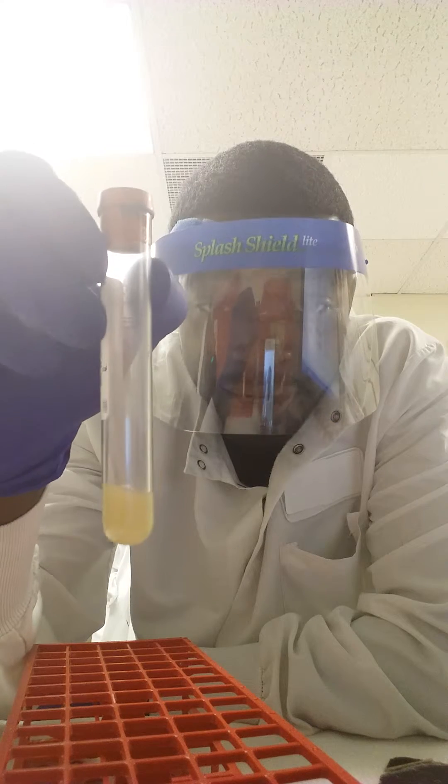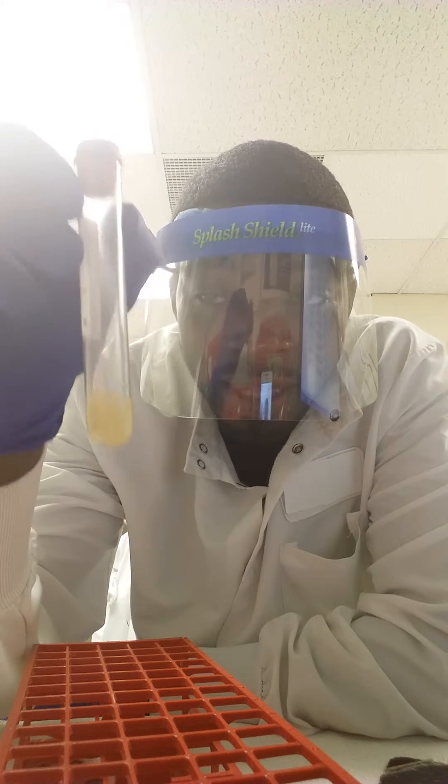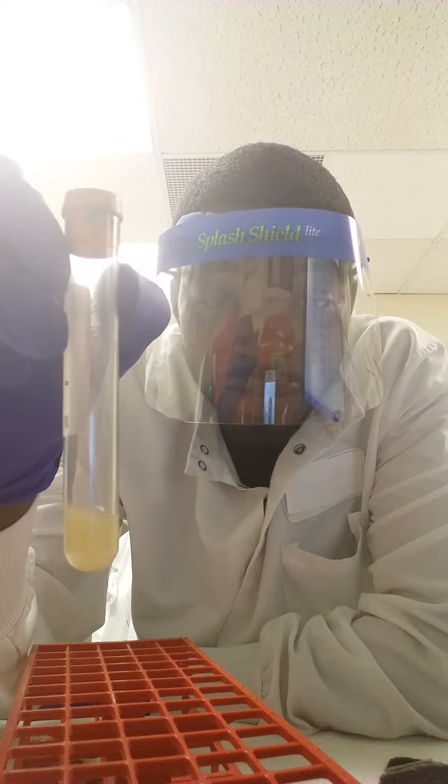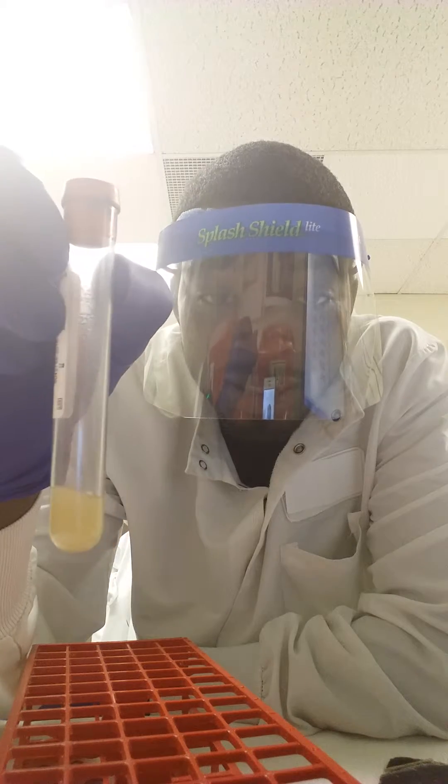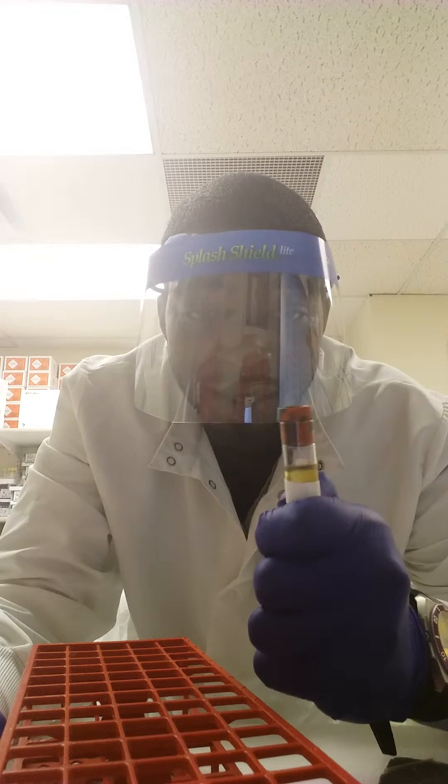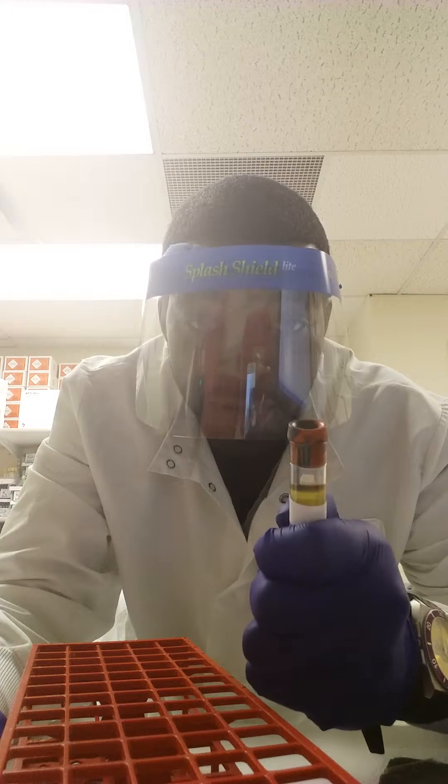So without further ado, let's get into it. First thing is first, you have your tube here and as you can see there is serum at the top of it, the liquid portion of the whole blood.